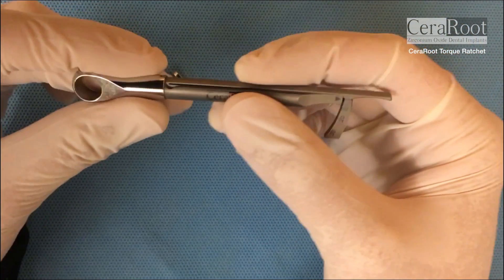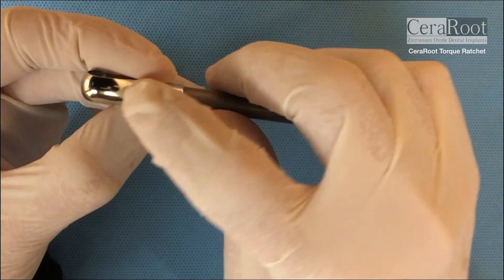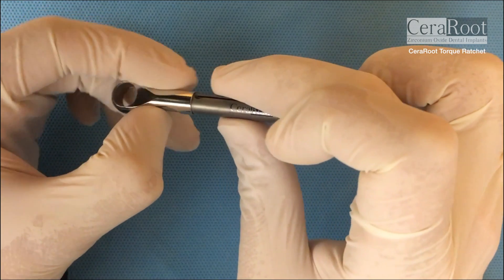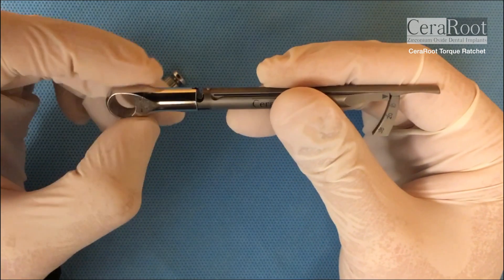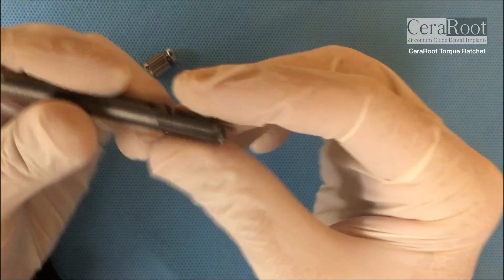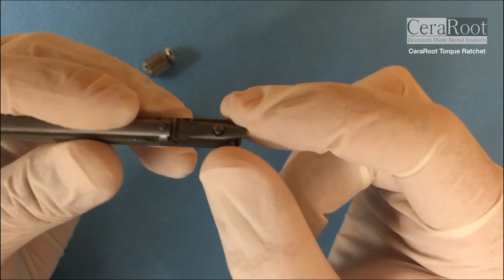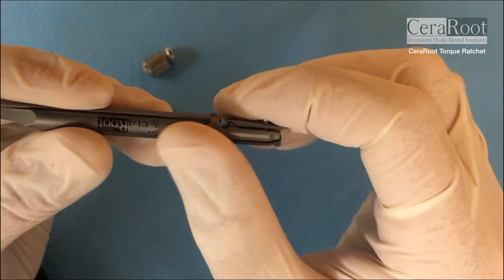To clean this torque wrench you have to push here on this area. The other side does not have this hole, so you have to push this hole down — strong down. Then slowly these two parts come out. With a toothbrush you are supposed to brush all these little parts so you don't get rust over time. Make sure you dismantle this wrench.